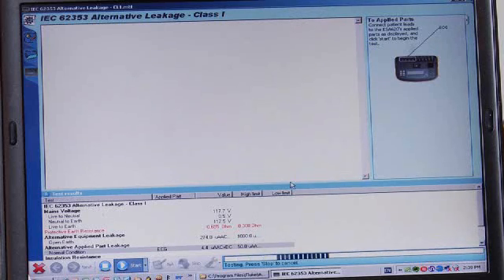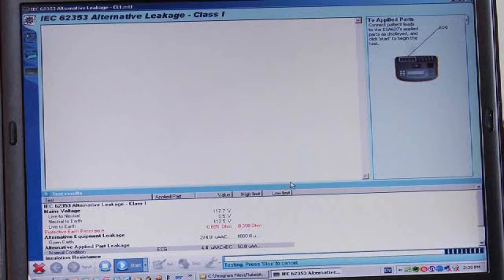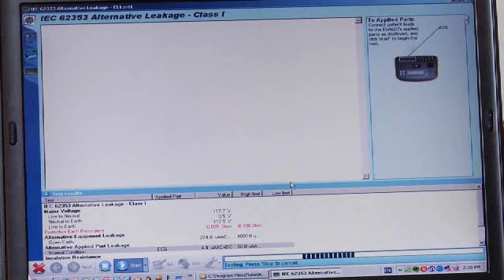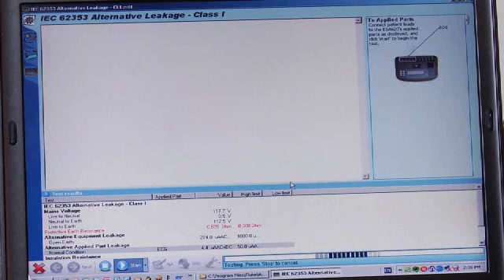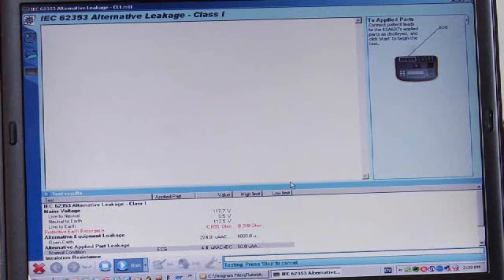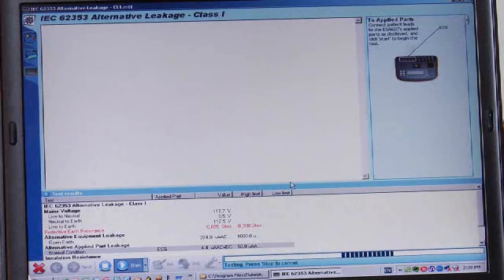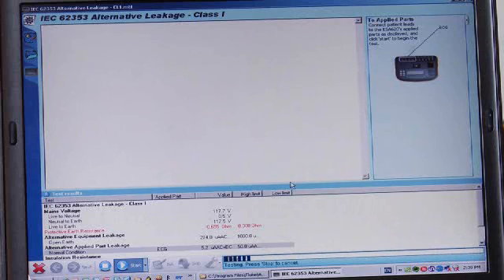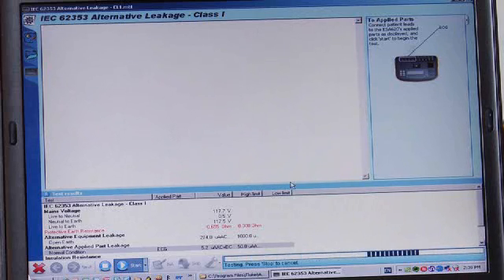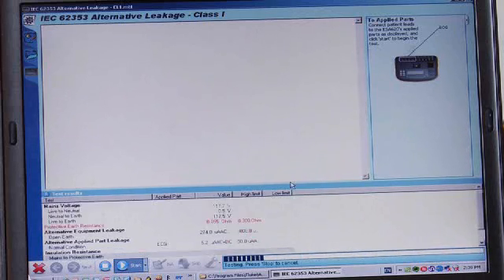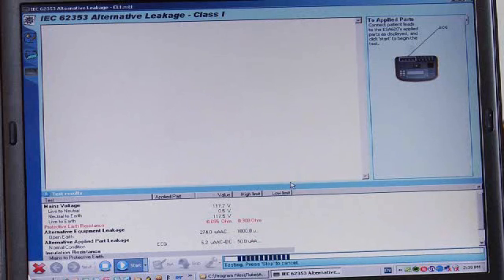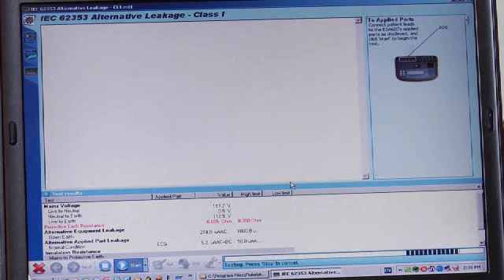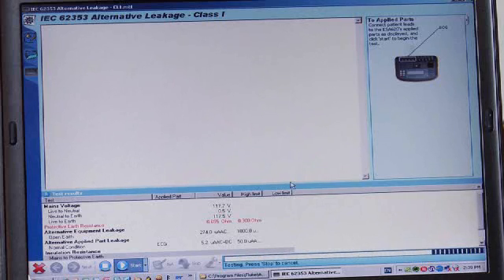The test procedure will first run through power on tests in the normal condition and then power off tests in the normal condition, and then it will run single fault tests where we open first the neutral wire in the power cord and then the ground wire. We'll report all values against their test limits in accordance with the standard that's being used to perform the test.